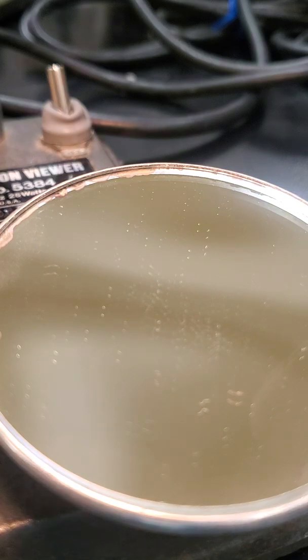So when you guys are filling in that interp, when you notate what blood type the unknown was, I want you to write the capital letter A, B or O. But when you determine the Rh status, positive or negative, I want you to spell that out instead of using a plus sign or a minus sign. So either spell out the whole word, or you could use POS for positive or NEG for negative.